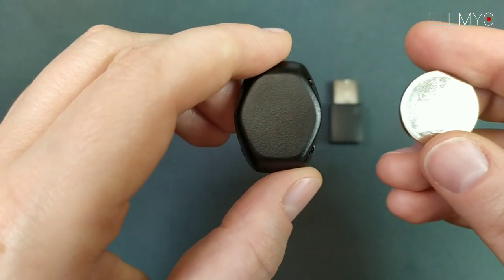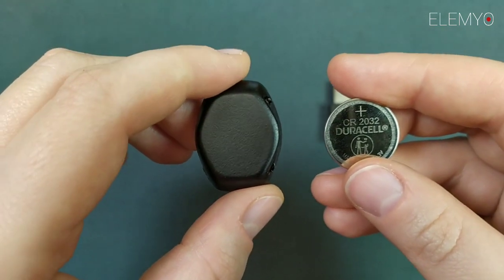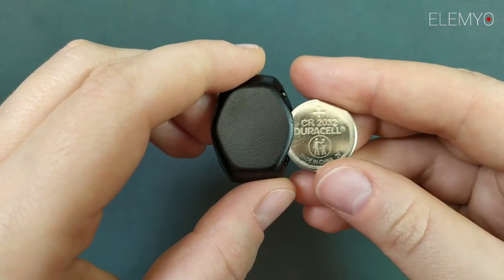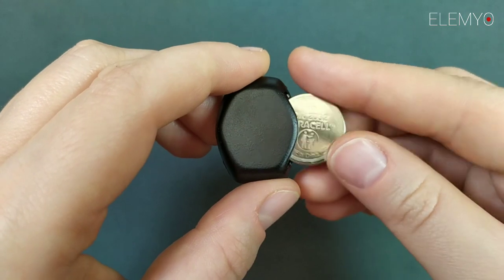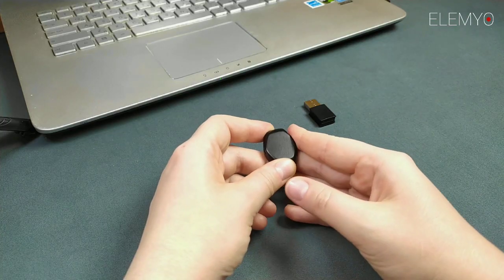Today, we are going to use lithium coin cell battery CR2032. Make sure that the positive contact of the battery is on top when you insert the battery into the sensor.